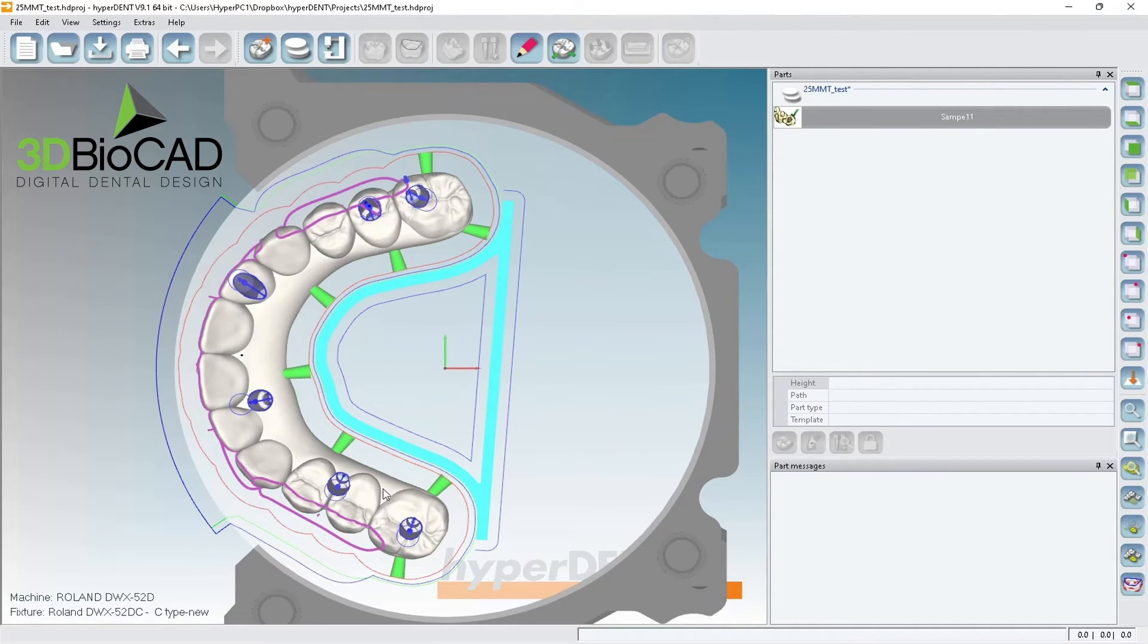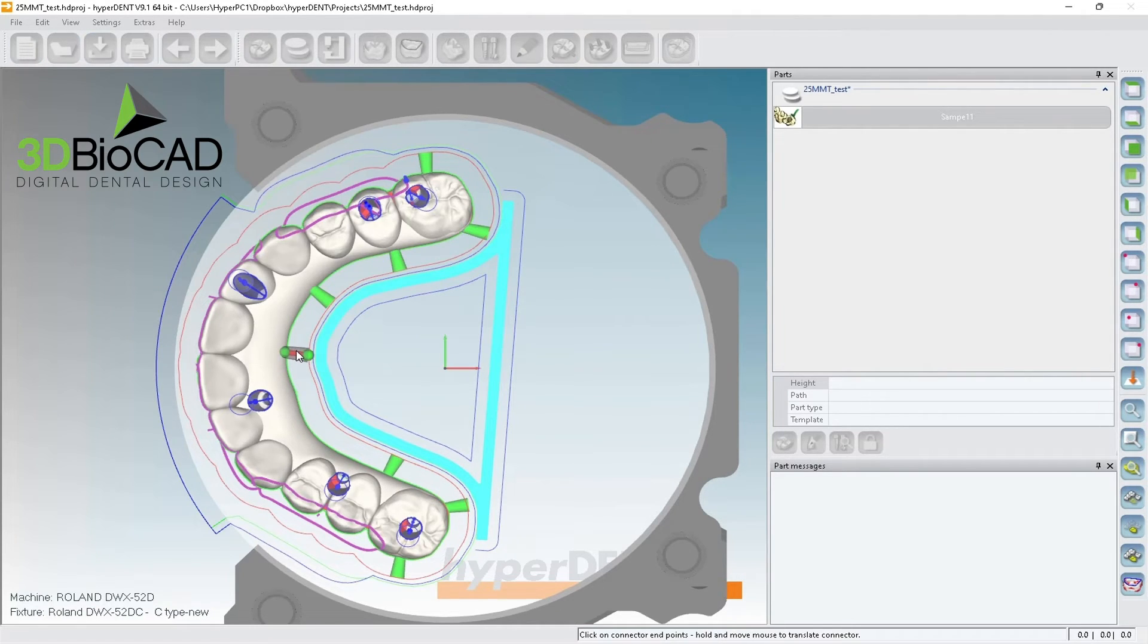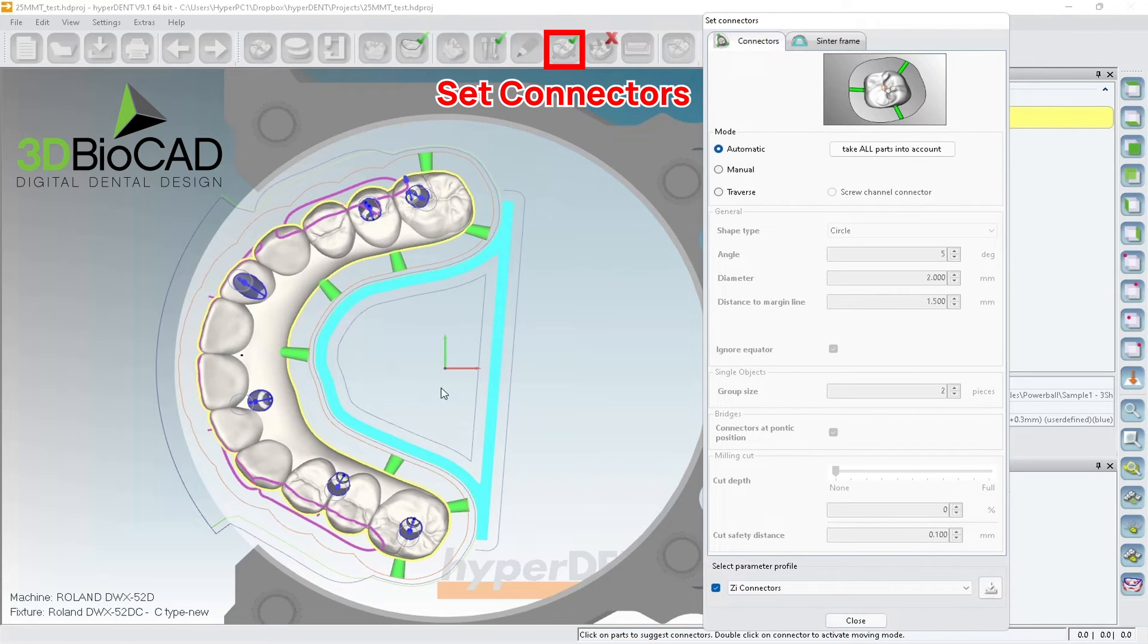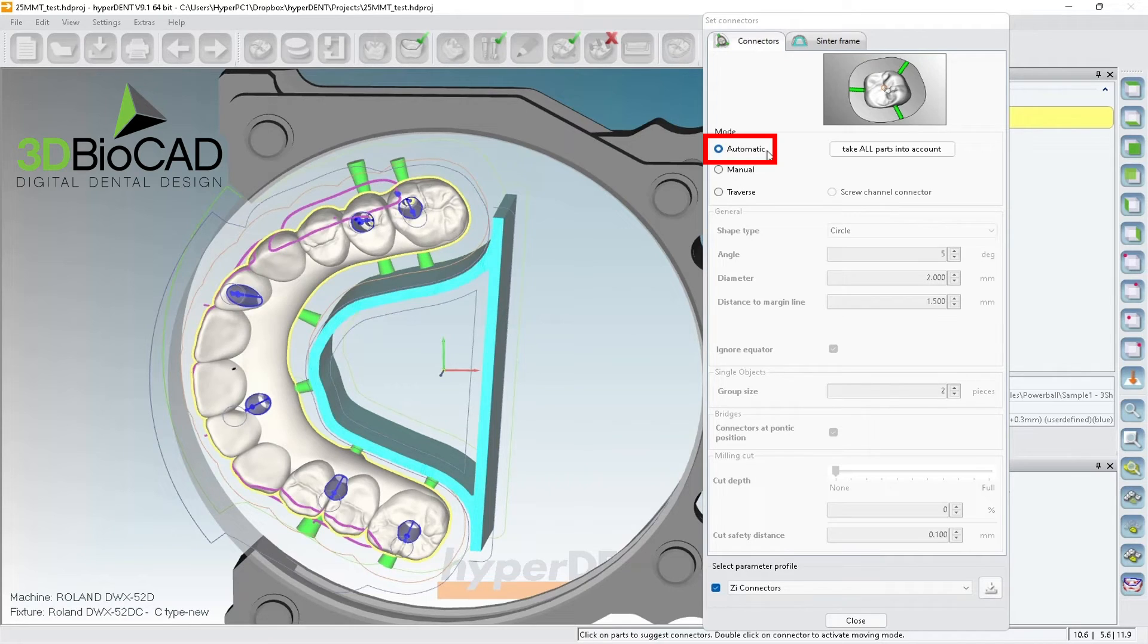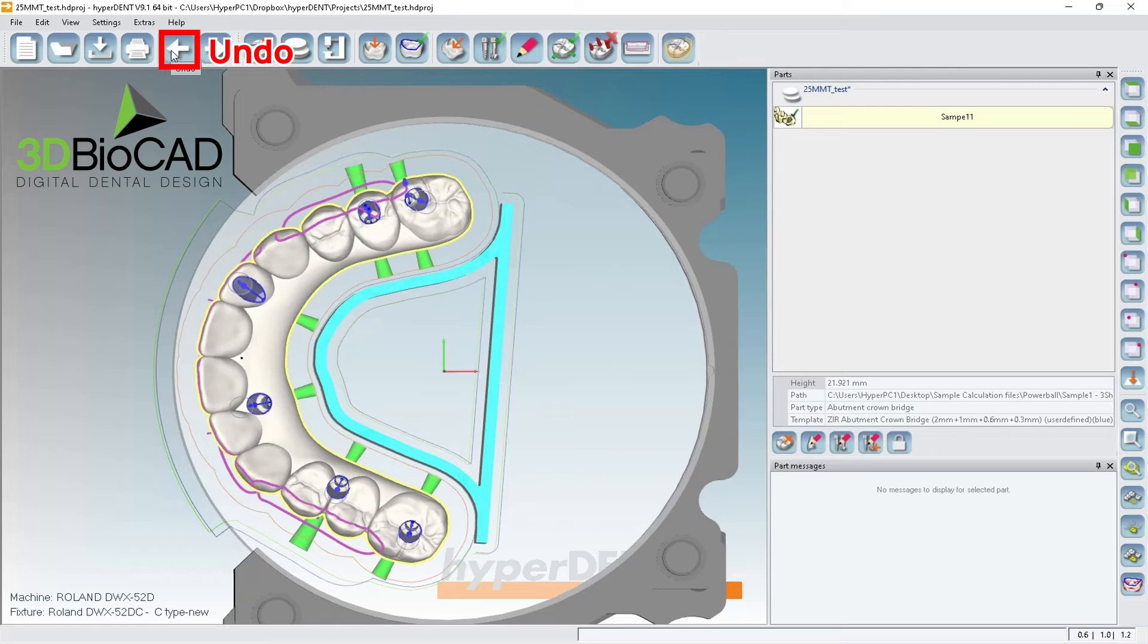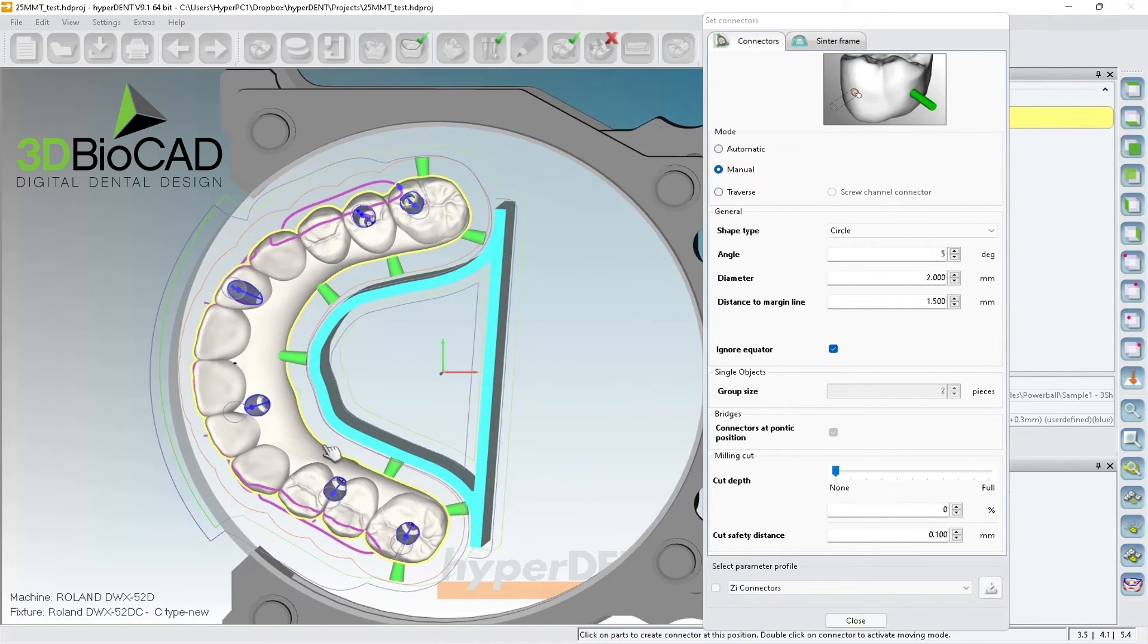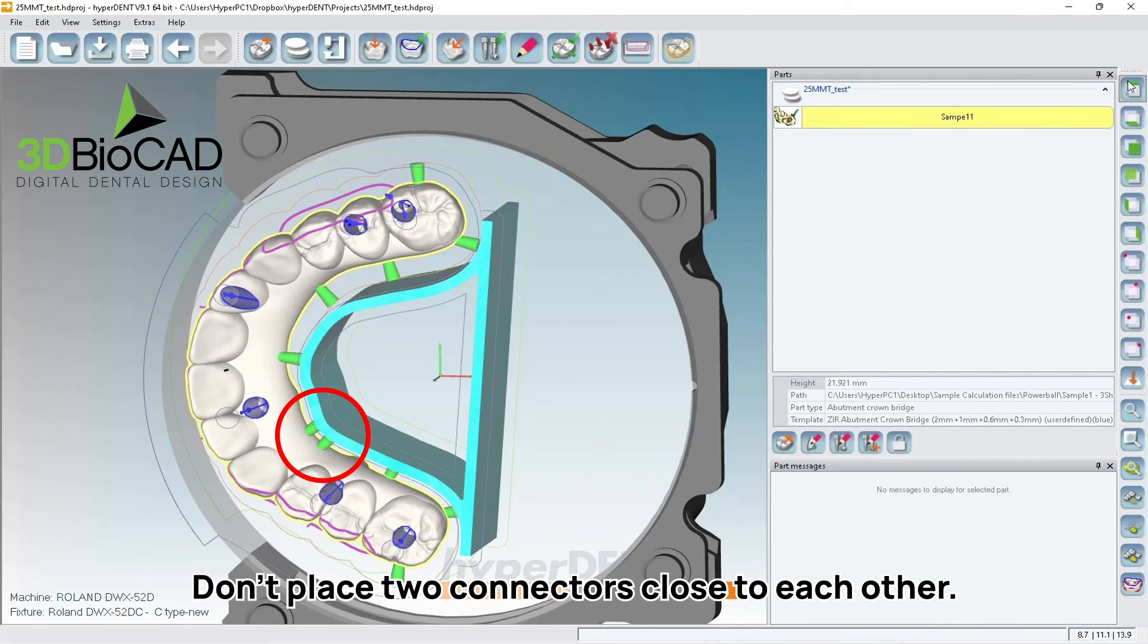And then you can move this a little bit like here if you think it's going to be too close. And if you think this is wide enough, then you can do this too. See like this, you put it like this, double click, like this, double click, like this, double click. Basically, what I'm doing is, I want to have another connector. Oh see, sometimes if you click automatic, then it'll screw up all the things. It was actually by accident. So what I'm going to do is, I'm going to undo. So make sure you click undo here. Then it'll bring everything where it looks like before.